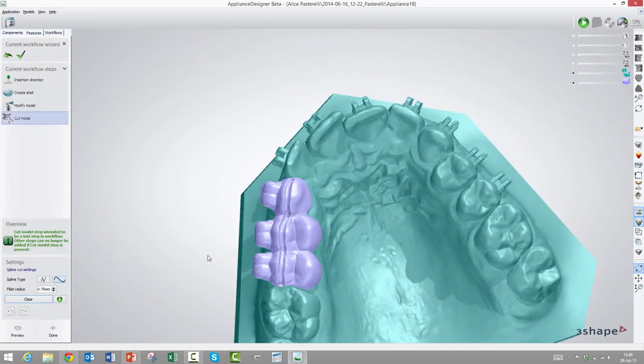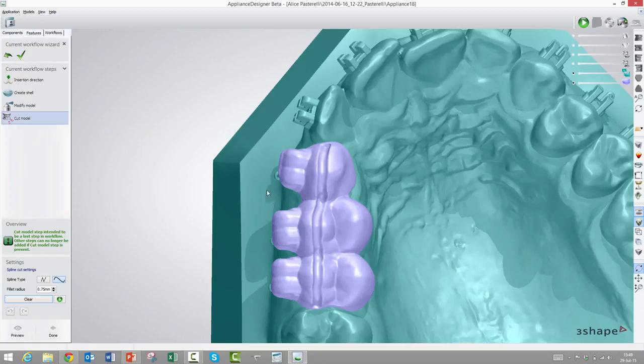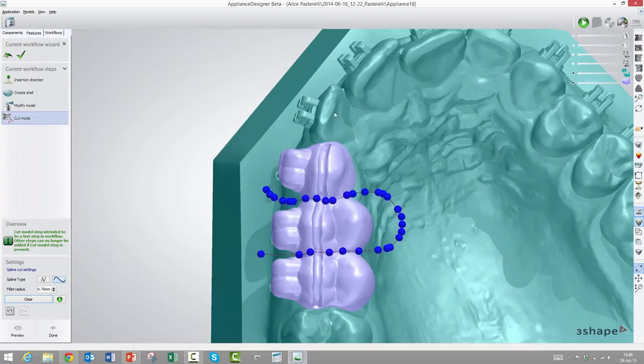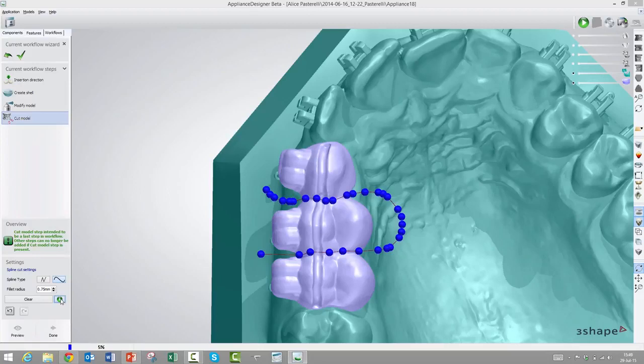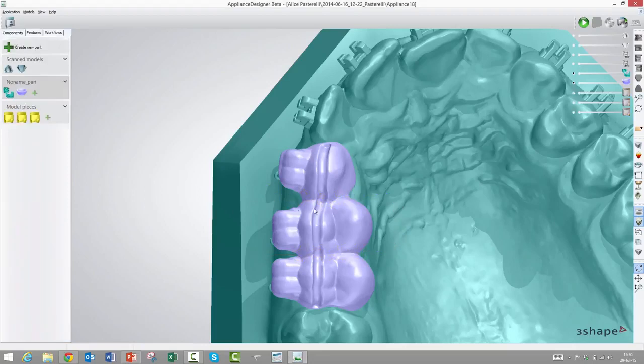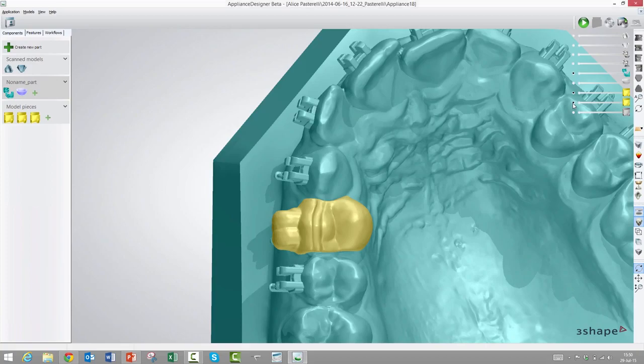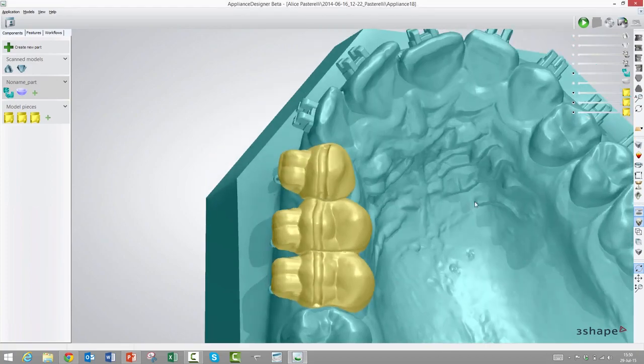So we could cut it up, and I'll demonstrate this function that does this. We have this cut model function, and what it does is that you can simply draw where you want to cut it. You don't even have to let go, you can simply just drag it around like this. So now we could have cut it up in the relevant places, press play, and then it will start cutting it up in the sections we have chosen. It's also possible to choose straight lines, and you can also define how thick the knife should be.